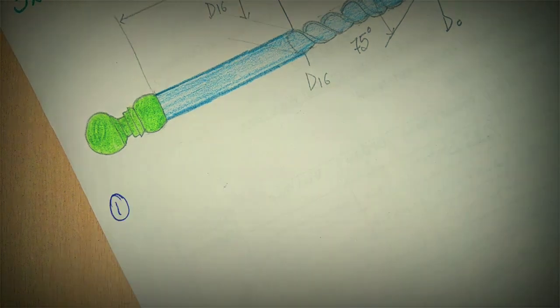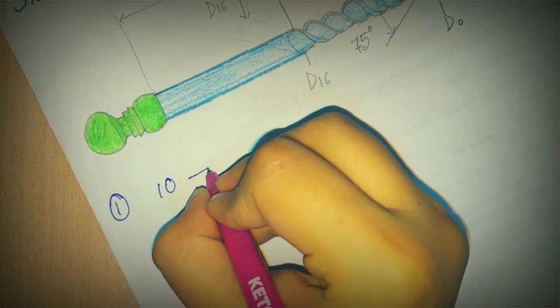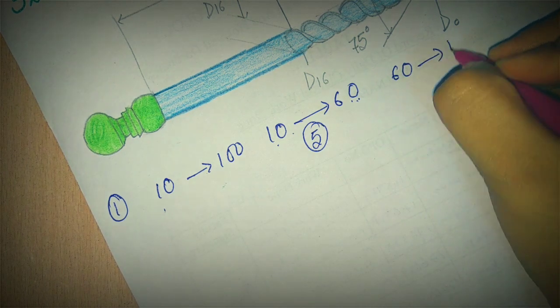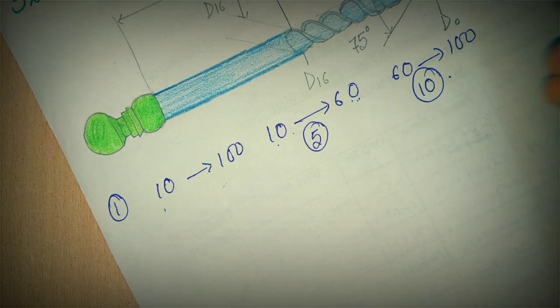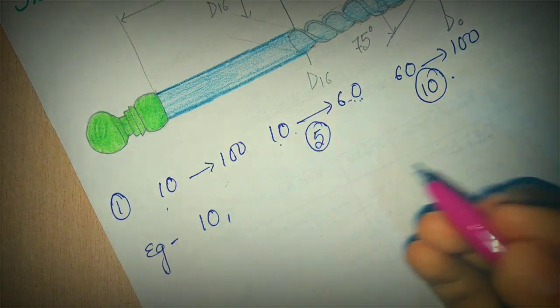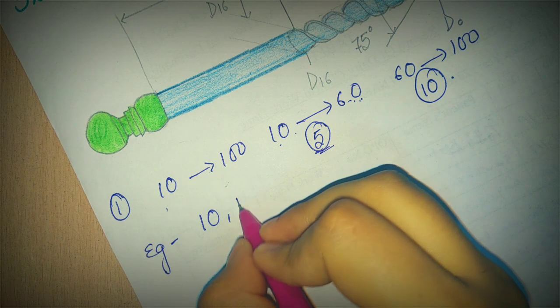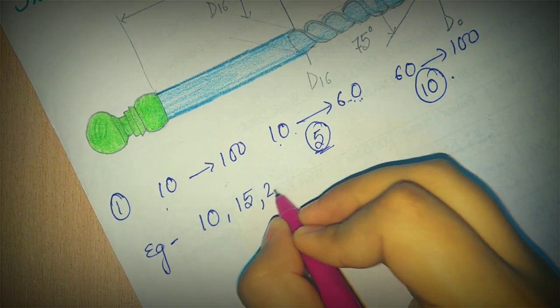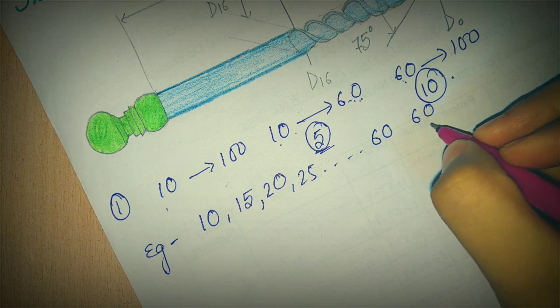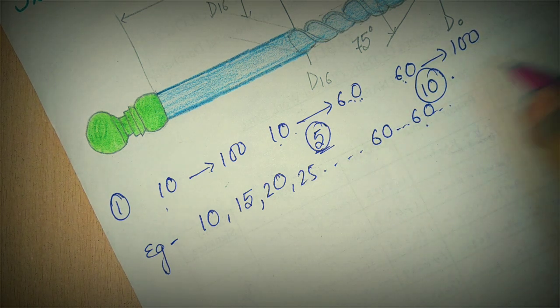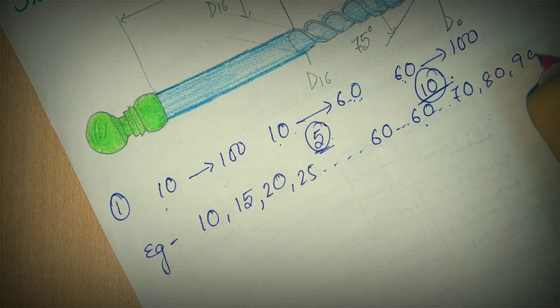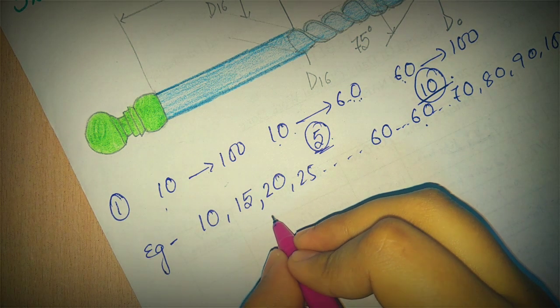Coming to the first point, there is a number of instruments. That number will start from 10 till 100. When you go from 10 to 60 number instruments, it will advance by 5 units. And after 60 to 100, it will advance by 10 units. Like for example, I have 10 number instrument, then we are going to 60, so the next instrument will advance by 5. So if we have another instrument that will be 15, then after that it will be 20, 25. Likewise it will go up to 60. And then, when we reach 60, we will go to 70 because it will advance by 10, not by 5. So we will go to 70, then 80, then 90 and finally 100. Now this has been revised from 6 to 140.